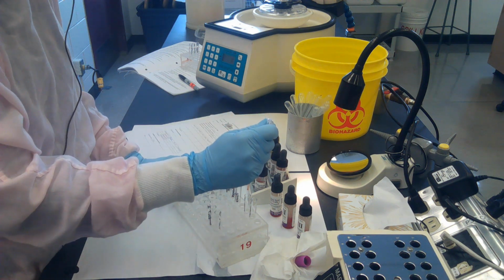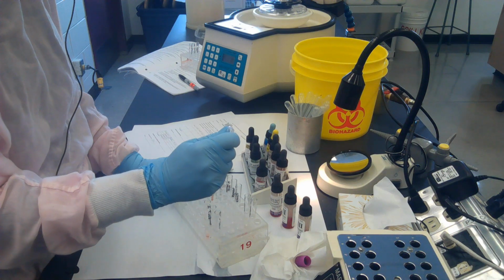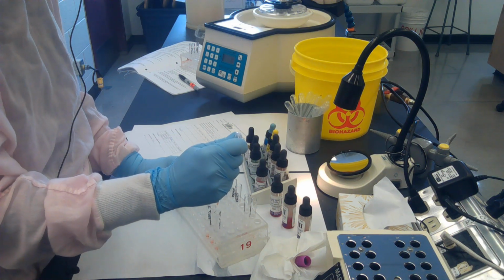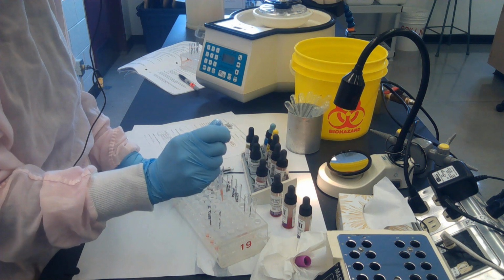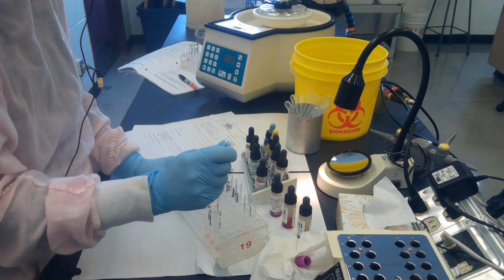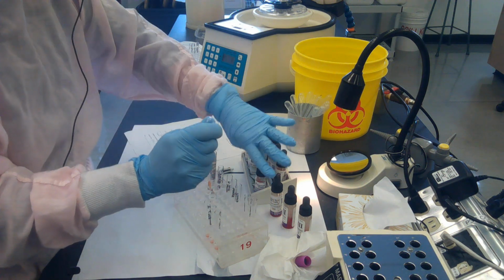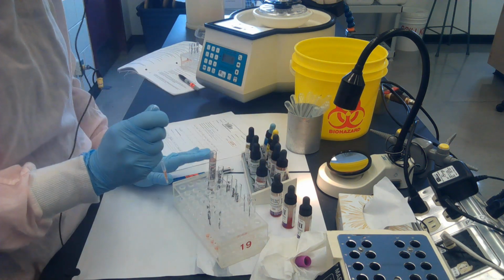Now my plasma appears a little bit hemolyzed, and it's because I'm using an older sample today, but hopefully you'll have a nicer, more fresh sample. I'm putting 2 drops of plasma in each tube. Notice that I'm holding my pipette tip vertically, and that the pipette tip is above the opening of the tube. It's not within it, and it's not touching it. Nice drops are formed that way. So 2 drops into each of the ABO reverse grouping and the screening cell tubes as well.